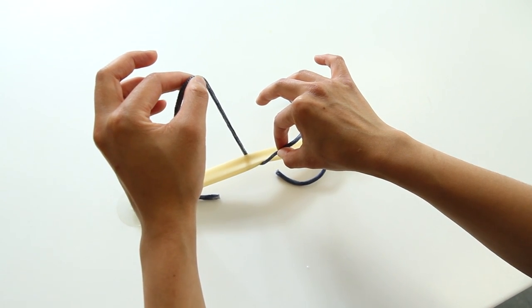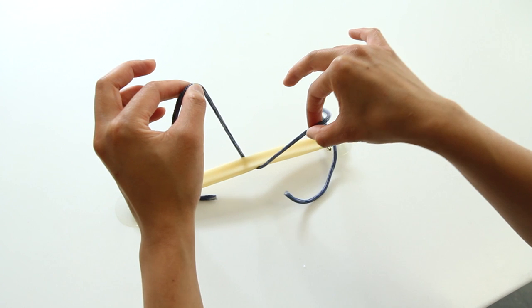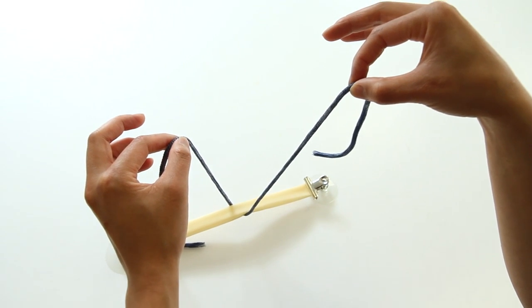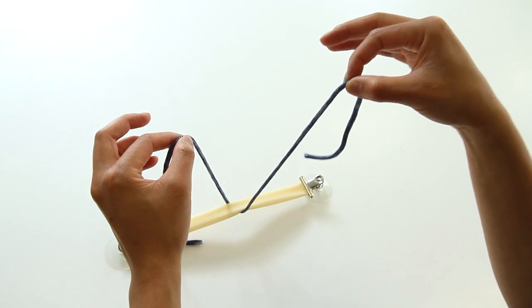Release the suture from the thumb and forefinger, then pronate the wrist in order to re-grasp the suture further down with the thumb and forefinger. This maneuver can be repeated over and over to gather excessive distance from the knot. Each repetition of the gathering maneuver shortens the working distance by one hand's breadth. To slide, lightly grasp the suture between the thumb and forefinger and slide up from the knot to lengthen the working distance. Note that sliding makes finer adjustments than gathering.